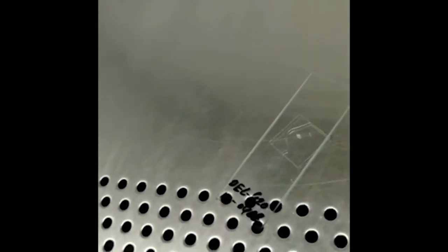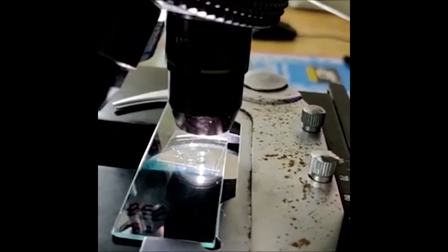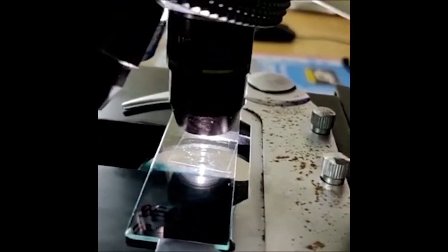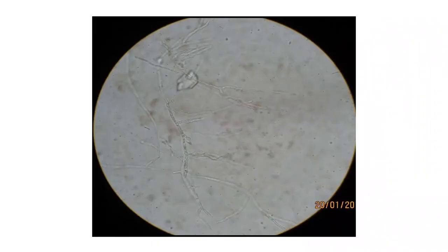Examination is done by placing the slide on the stage of the microscope, first under low power at 10x. Illumination is reduced by lowering the condenser, and then high power examination is done under 45x for the presence of fungal hyphae.